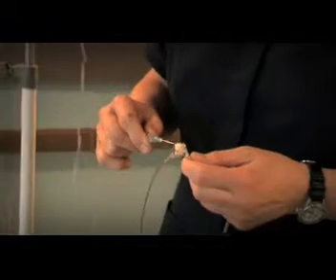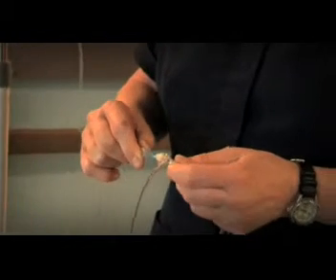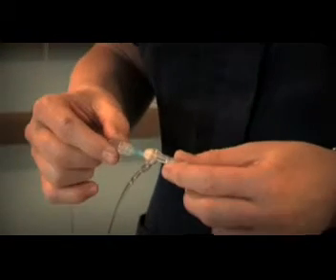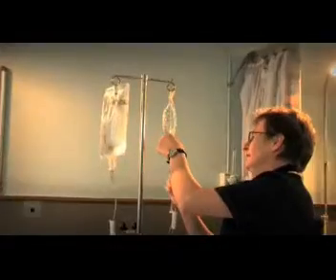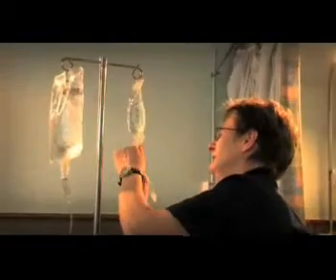Intravenous drip lines can be connected so that two sources of fluids both flow into one tube. This is known as a piggyback. With some traditional models of IV sets, the piggyback line may become disconnected because there is nothing to secure the junction of the two lines.